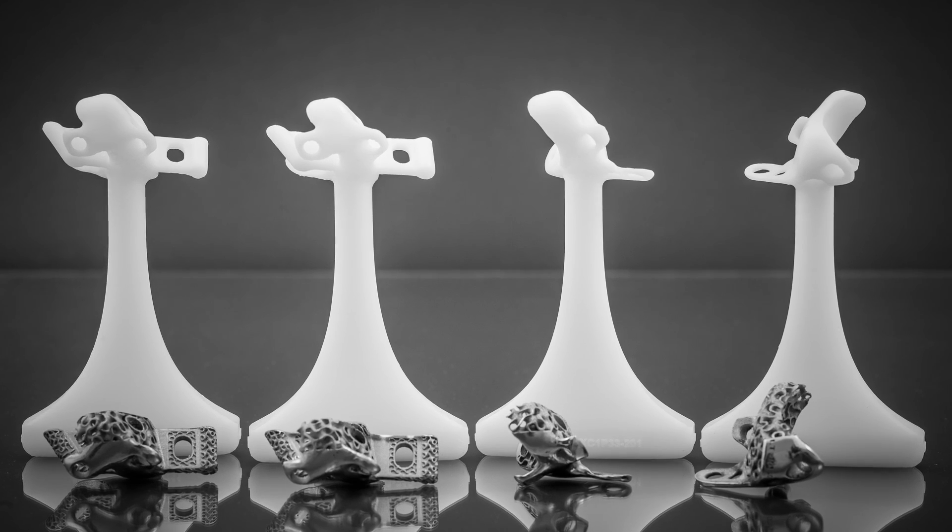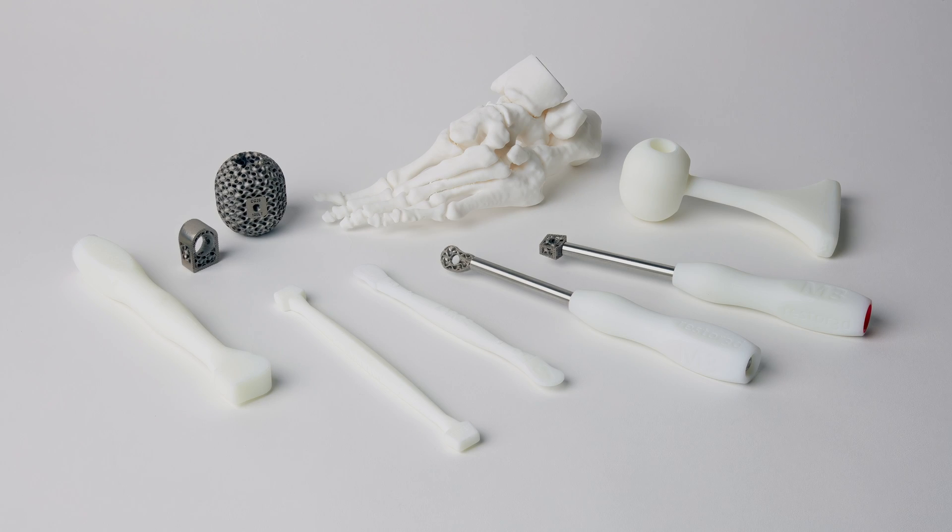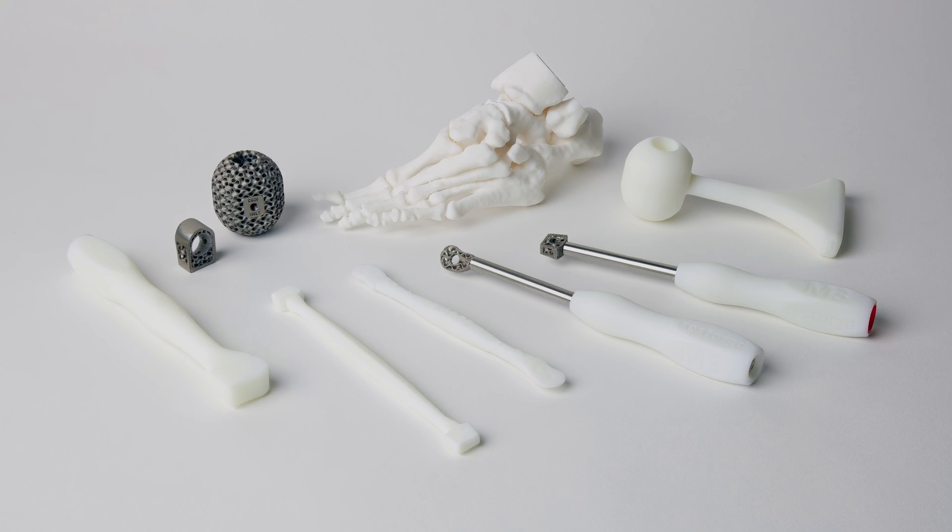In most of our cases we'll provide between one and three metal implants, and we'll probably provide between six and eight Formlabs components that come with the metal instruments. So the Formlabs instruments are really central to the completion of the case and most of what we're doing.